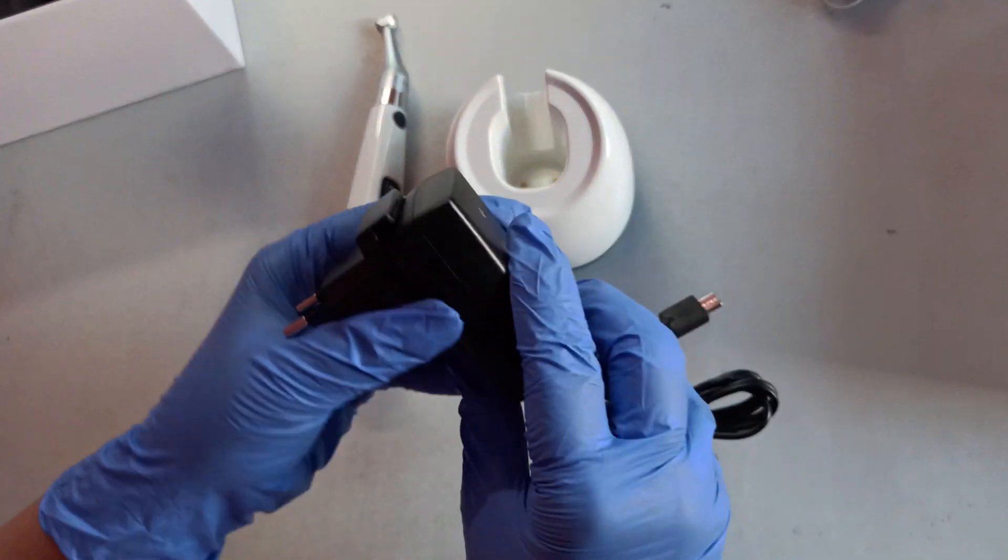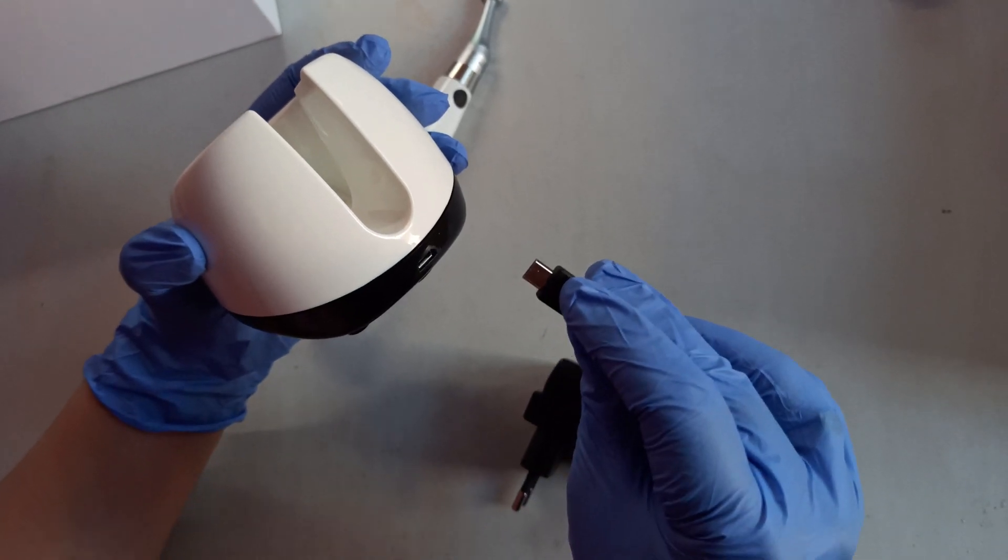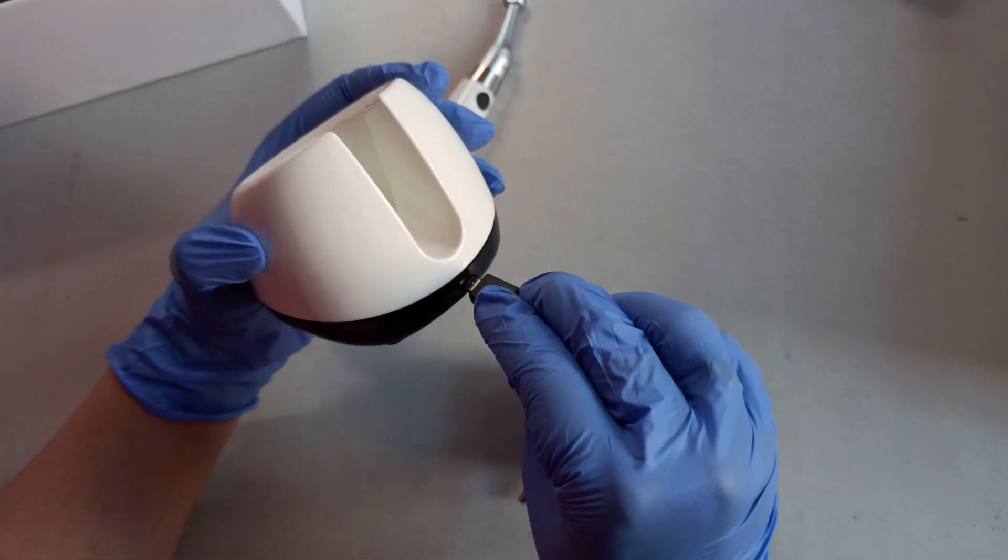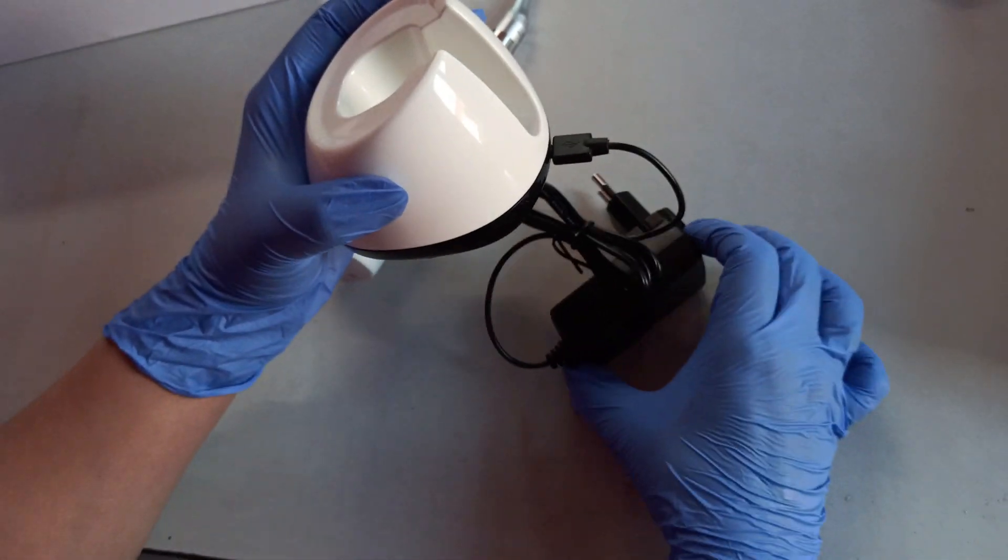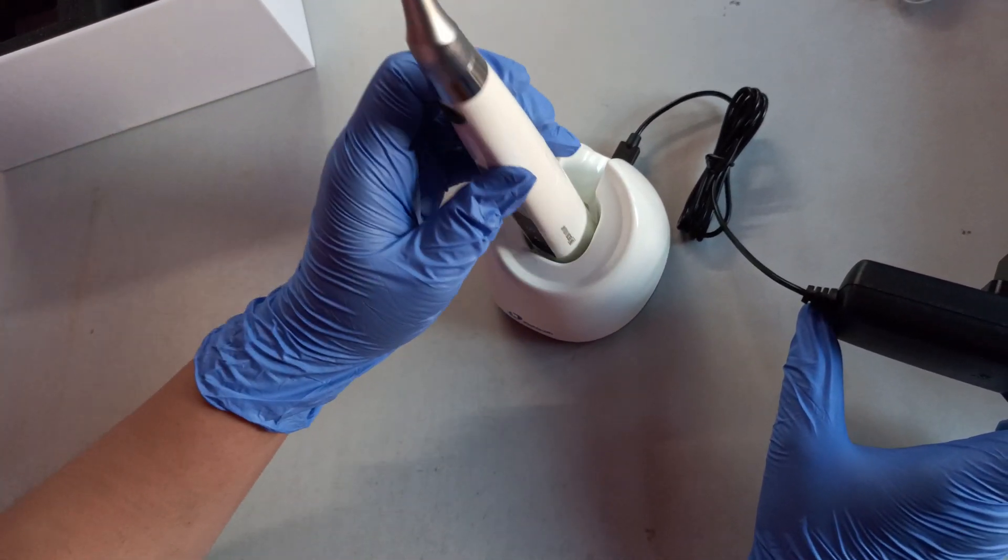For charging the endomotor, you need to put the charging adapter wire into the charging socket like this, and then plug it into an AC voltage.